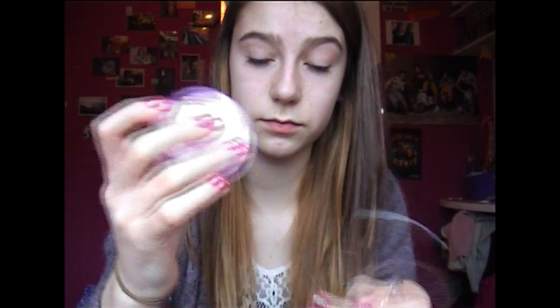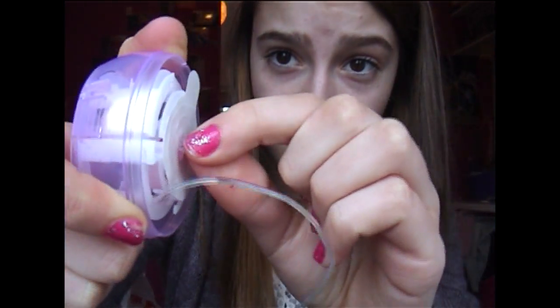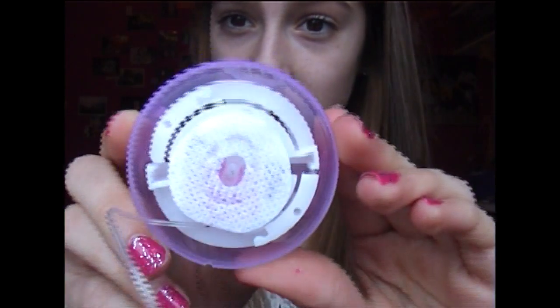The set comes pre-packaged in this inserter pack. What I do is rip off all the packaging, pull the wiring out, take the plastic off from above the needle and pull away the paper protecting the set. I'm left with something looking like this.